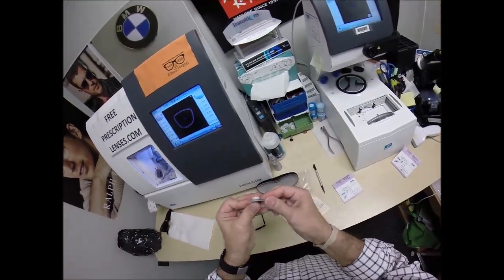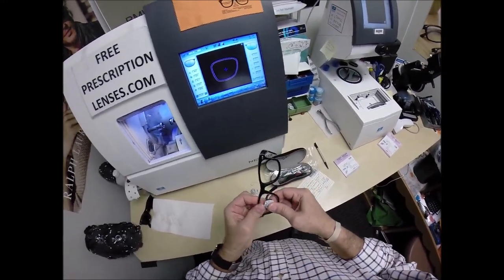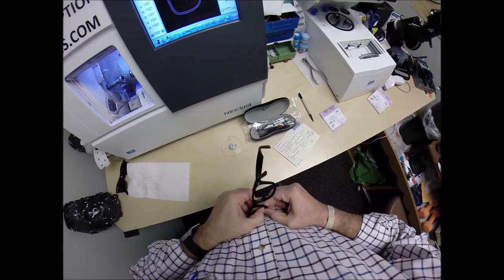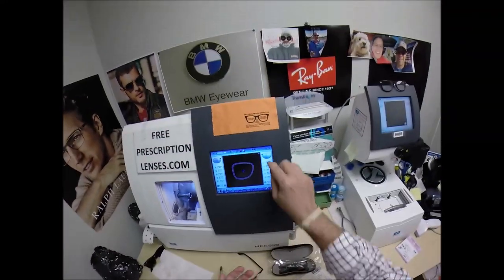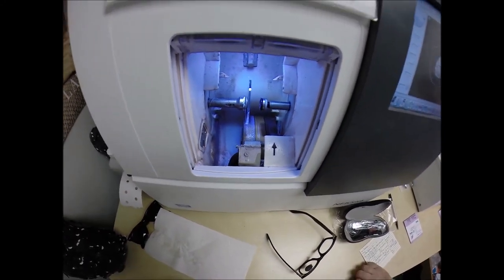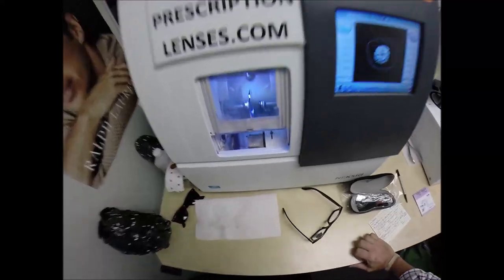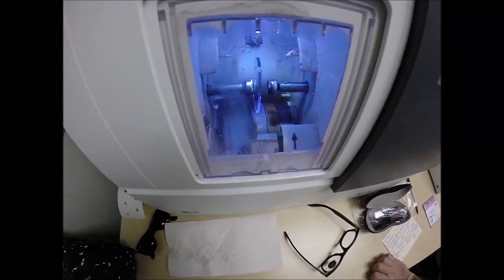Come back here, dry everything off, get the swarf off. Let's see if this fits first time around — tuck it in at the outside corner. Oh, it does — I got lucky! Flip that over to L, press the magnet into the chuck — the Charles, the Chucky baby, or tonight I'm calling it the Davani — hit the green start button, the door closes.